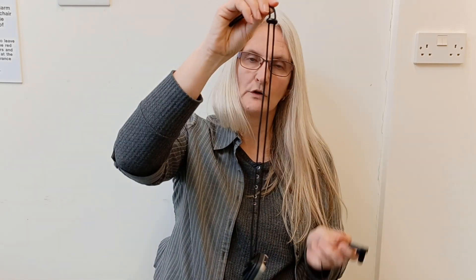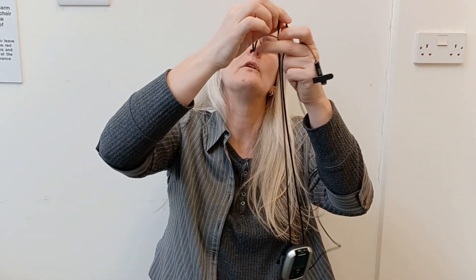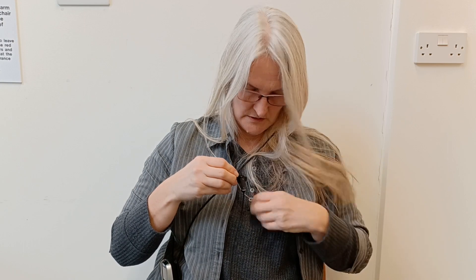To lengthen or shorten the lanyard, it's best to use the knob at the back rather than trying to pull at the ends here. You can wear it at full length almost like a sleeve over your shoulder, a bit like a handbag, but you need to position the microphone so that it hangs down from your mouth.